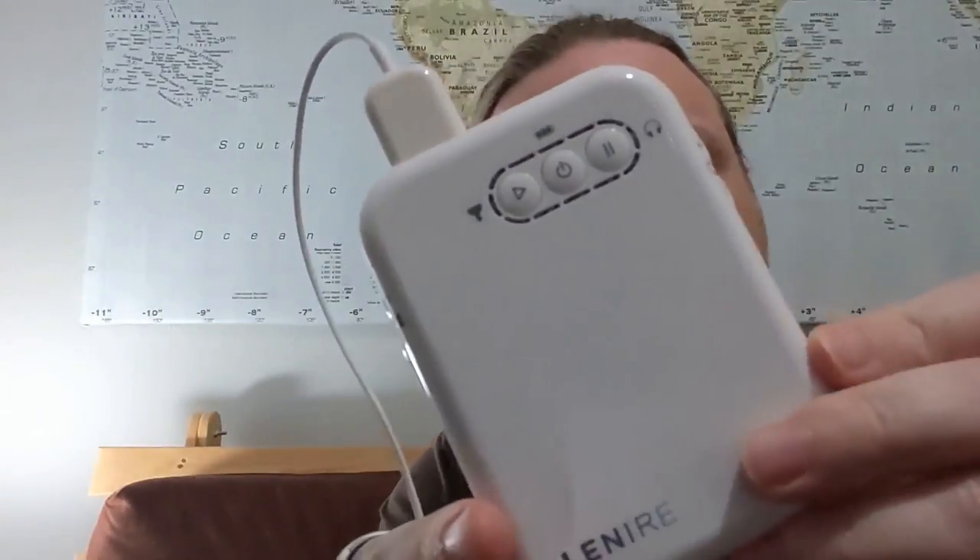And in here is the actual device. There are a couple of pieces here. First of all, this is the machine. We've got some buttons. It's kind of plasticky but fairly robust. And a couple of volume controls, but it's all been preset to my hearing.